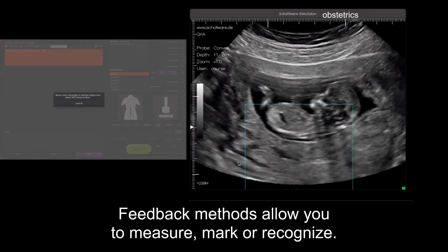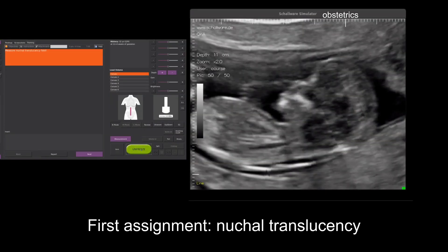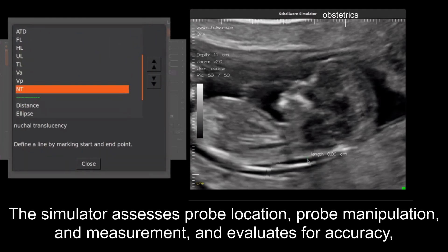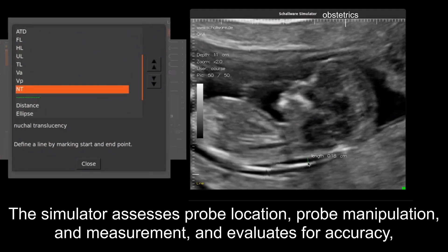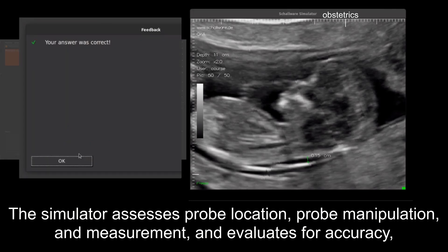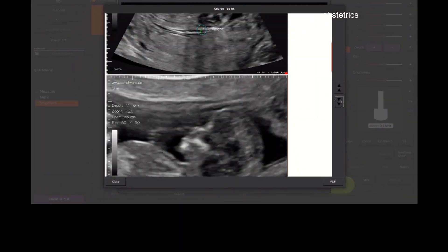Feedback methods allow you to measure, mark, or recognize. First assignment: nuchal translucency. The simulator assesses probe location, probe manipulation, and measurement, as well as conducting evaluation for accuracy, ultimately producing a detailed competency report with scores.